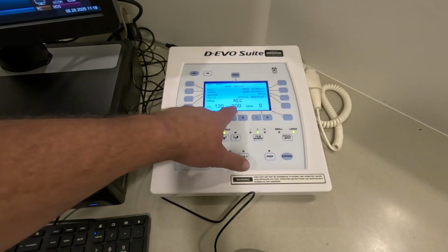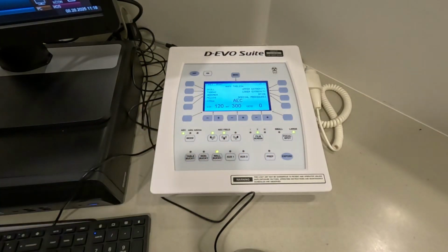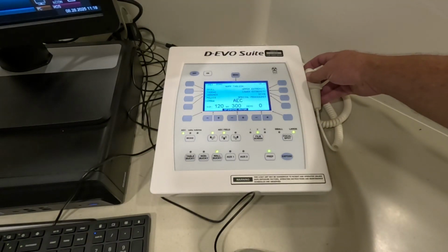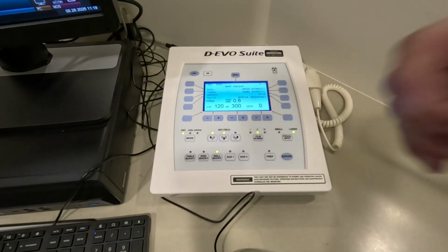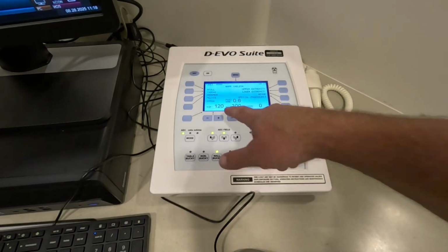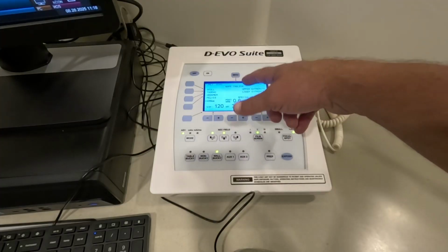So your mA is set, so fundamentally what that does is it sets your time, so you get an overall mAs value. Now, I'm not shooting into anything, so this is going to be very low exposure, but I'm going to go ahead and make an exposure. And you can see that your total mAs there was 0.6. If I had a patient in front of it, your kVp would remain the same, and what would happen is you would have a higher mAs value.